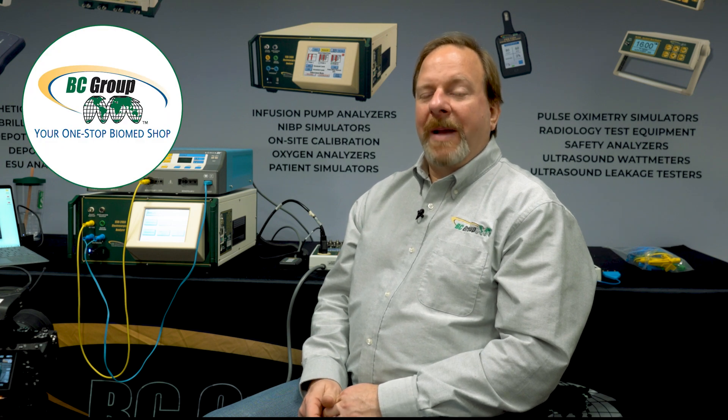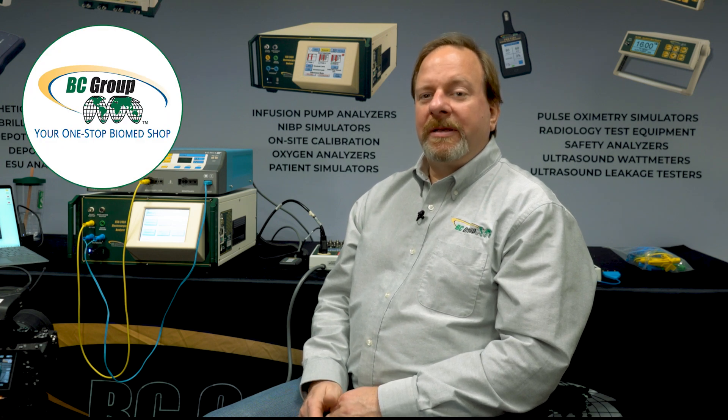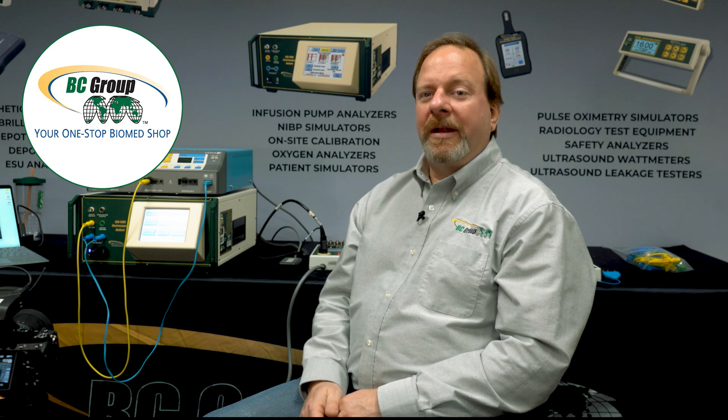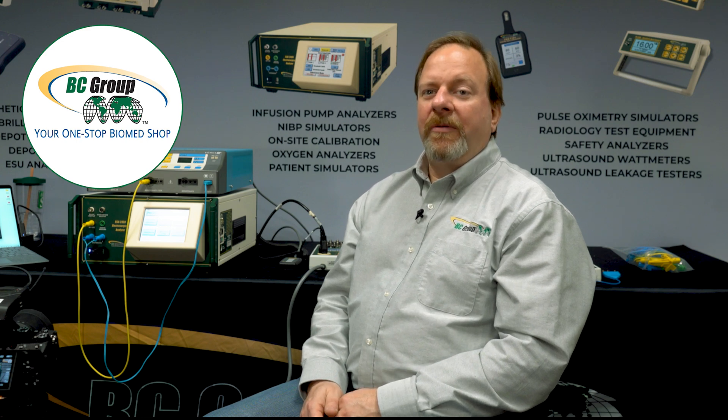Hi, this is Lucio Simone and in this video we're going to demonstrate electrosurgery testing, both power and safety testing using the ESU 2400 and SA 2600 with MyBC Mobile.